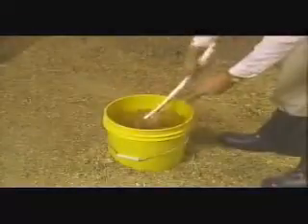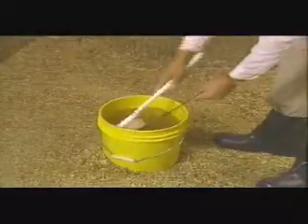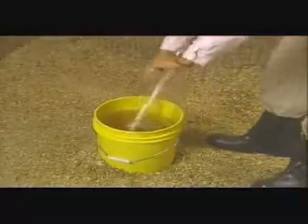Clumping caused by dirt takes place only in one or two spots, which helps distinguish it from a true reaction. To help avoid possible dust contamination and to make sure the smears don't dry up, rinse the plate as soon as possible after results have been determined — simply by dipping it in a bucket of clean water and then wiping it dry with a squeegee and clean cloth.